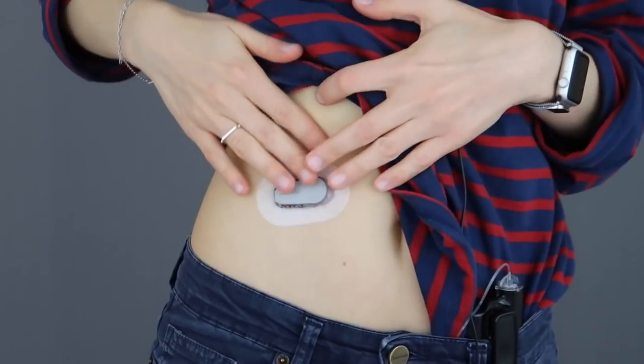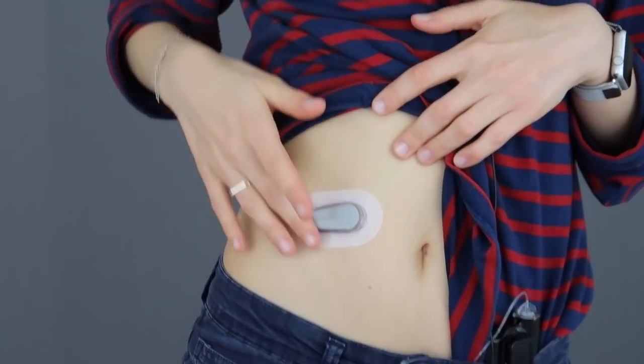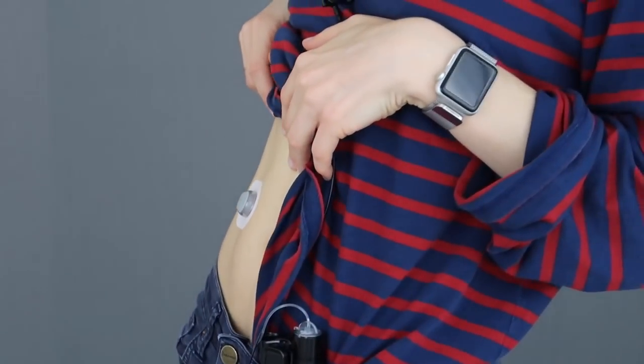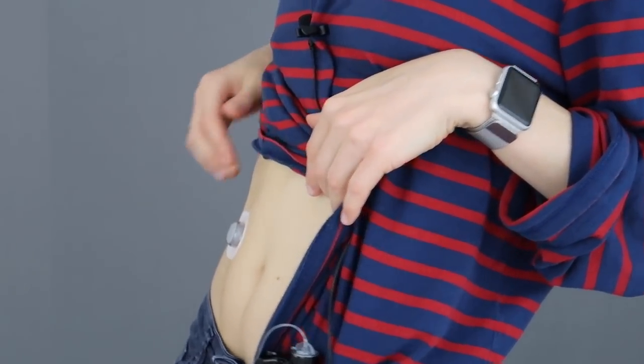I know this is something they've updated from the G5 to the G6, and I will insert a few clips here showing just how flat it lays against your skin. I have actually measured it and taken a measuring tape to the device as it sits on my stomach, and it doesn't even stand up off the stomach a full centimeter. That is tiny, and therefore my awareness of the system was little.